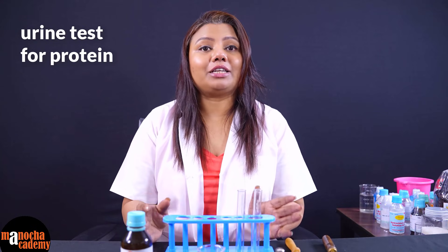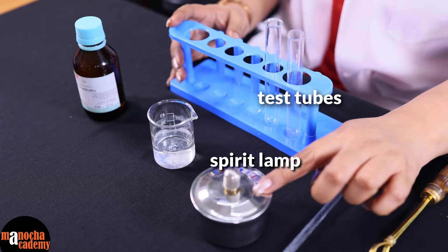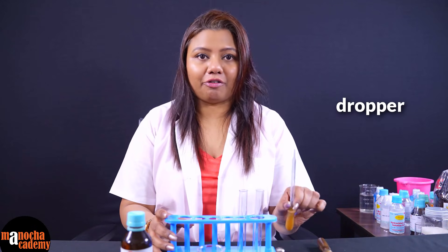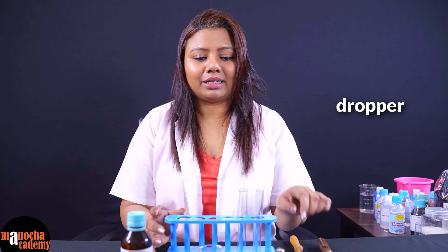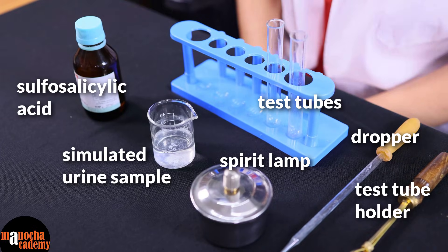The first test we are going to perform is to detect the presence of protein in urine. For that we have taken test tubes, a spirit lamp, a test tube holder, a dropper, the urine sample and sulfosalicylic acid. The urine sample contains protein, and we will see what happens when we perform this experiment.